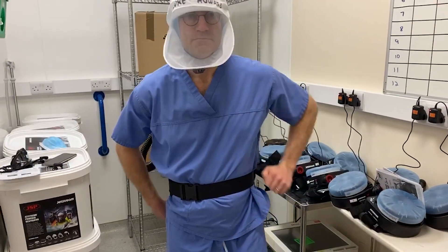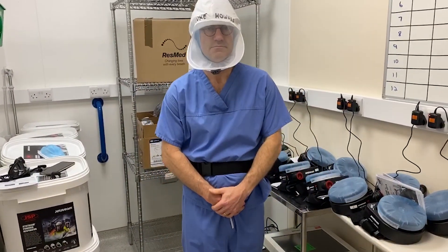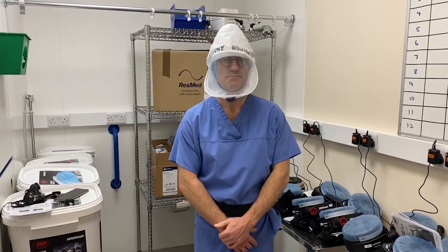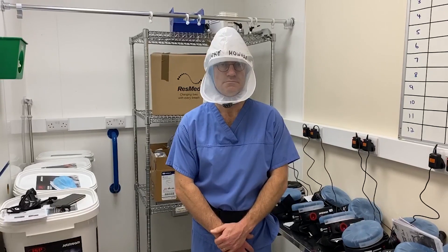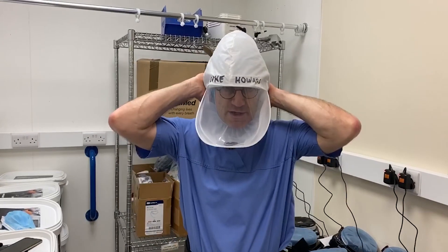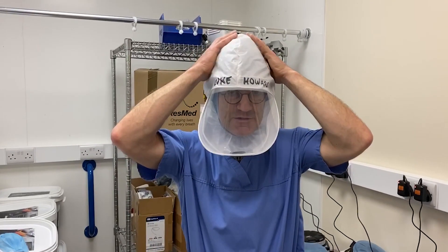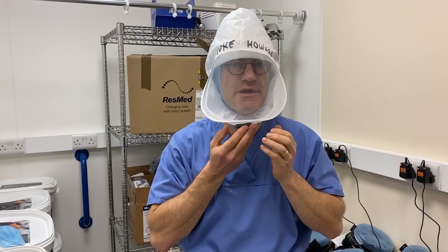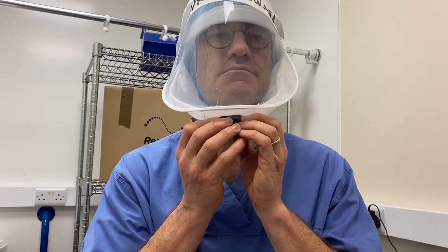Step away from us, Luke, so I can get the whole look at you. Then I'll turn it on with the button. I can hear it. What does it feel like inside? Very nice — there's cool air. You can feel it coming over the back. You can see it's inflated now. It's coming over the back, going over my face and coming out through here. So the exit point is this contraption here. We need a nice tight seal around our face, and then the exit through there.